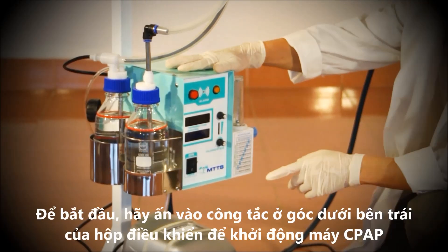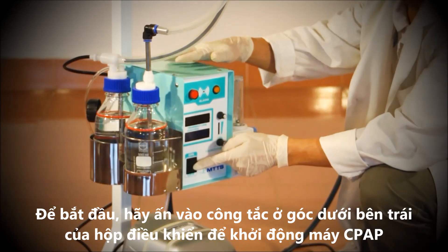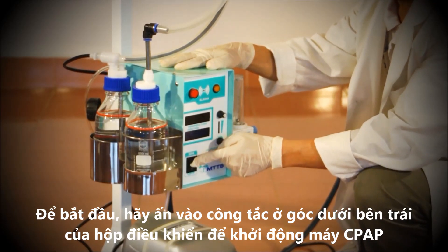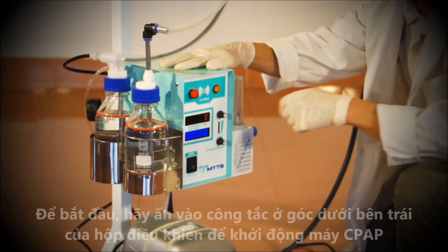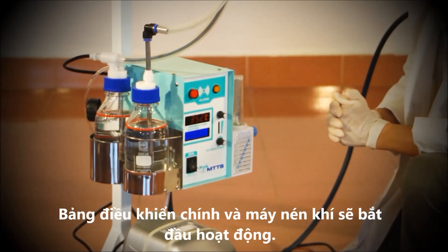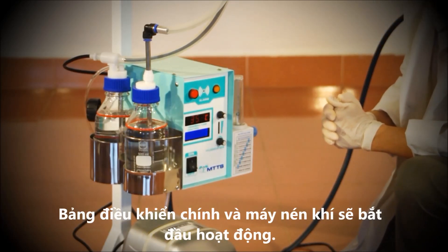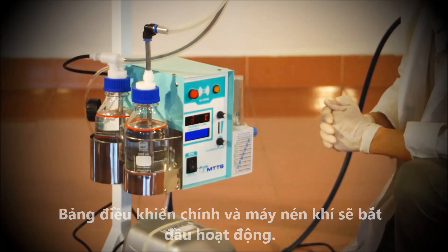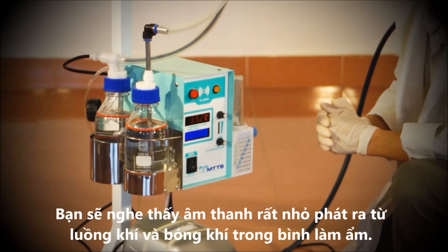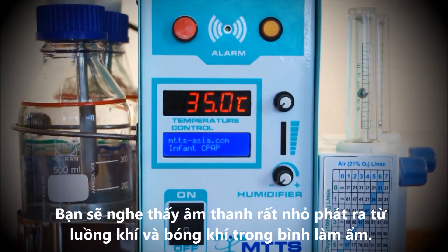To begin, turn on the CPAP by pressing the switch at the left bottom corner of the control box. This starts the main control panel and air compressor. You will hear a low noise created by air flow and the bubbling in the humidifier bottle.